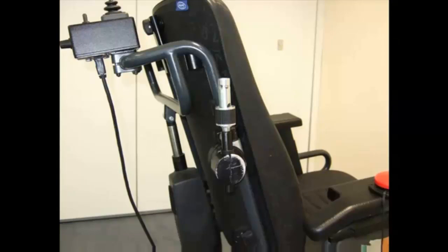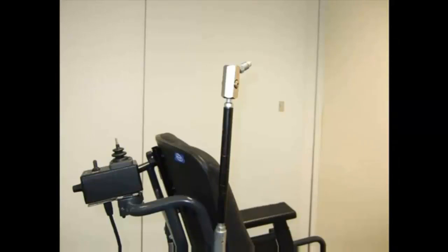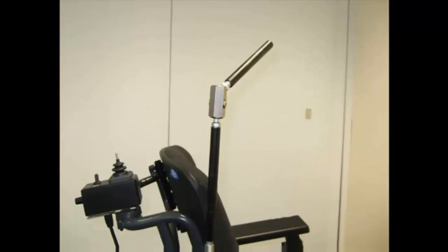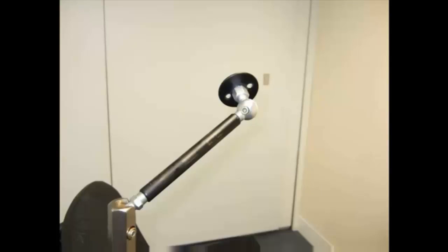From here, just add the appropriate poles and adapters one by one to bring the mount to the most suitable position for the user. At this stage, final tightening can be done.